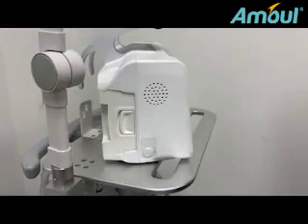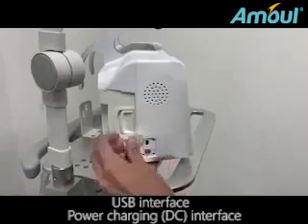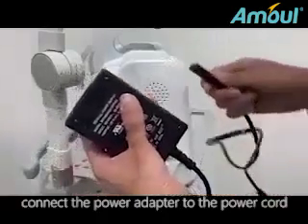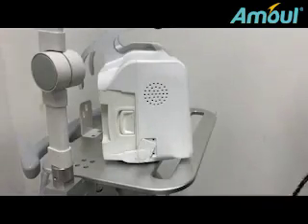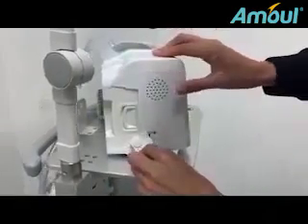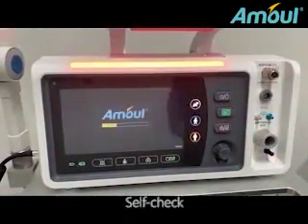Adjustment parameters for starting up. Speaker. USB interface. Power charging, DC interface. Connect the power adapter to the power cord. Note that the red dot indicates the corresponding DC position to charge the battery of the device. Short press to start up. Long press for 3 seconds and then shut down.